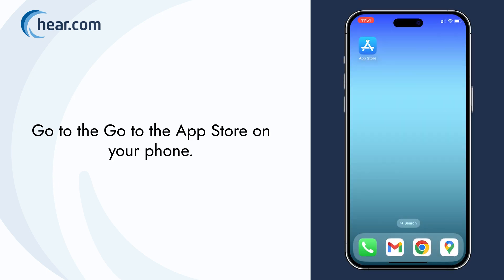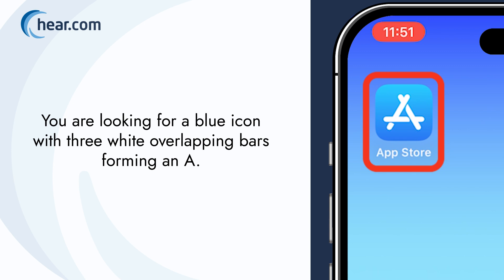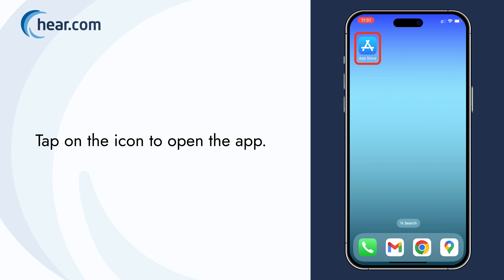Go to the App Store on your phone. You are looking for a blue icon with three white overlapping bars forming an A. Tap on the icon to open the app.